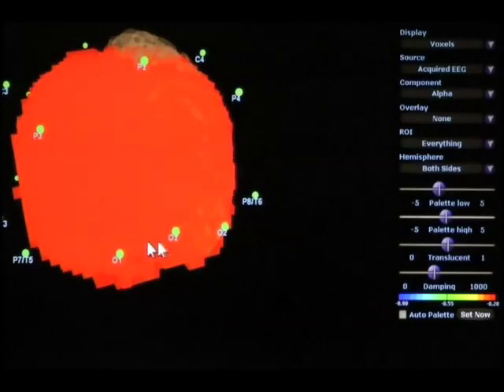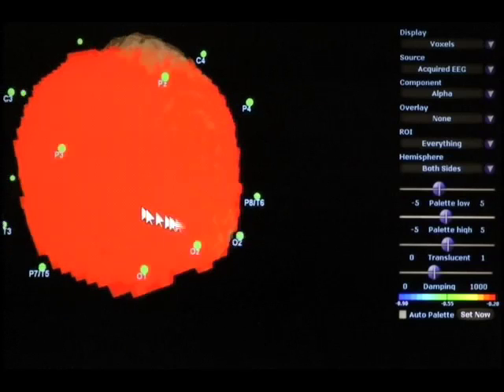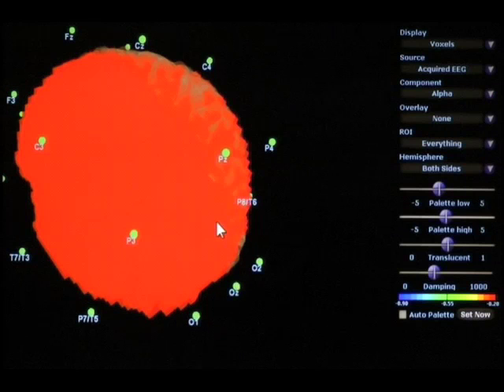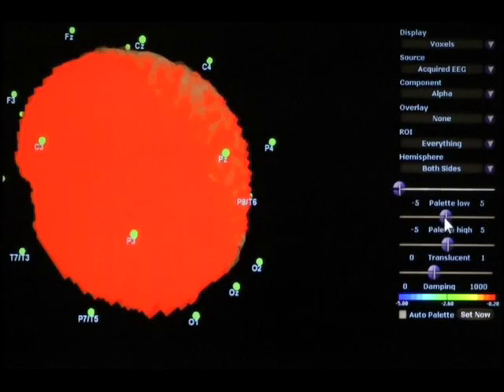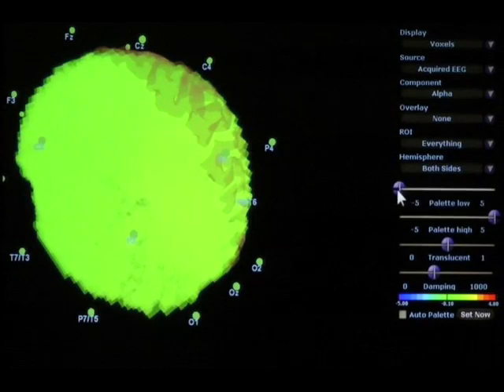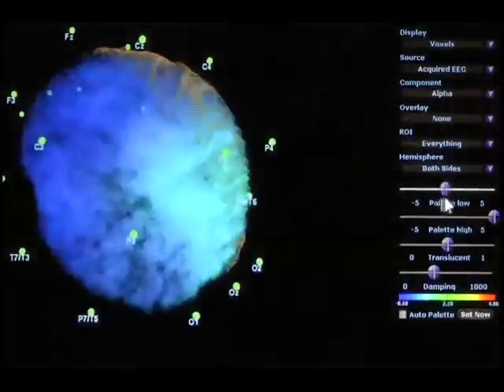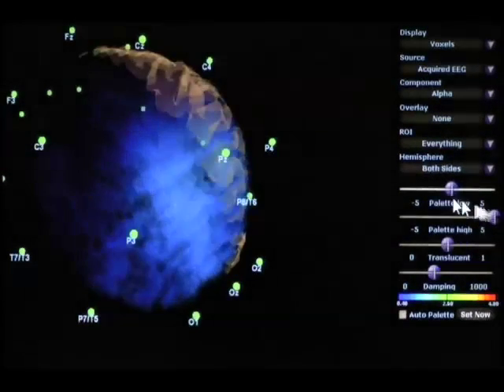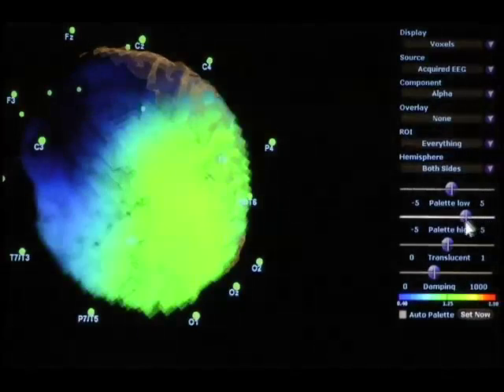When you're viewing these live LORETA screens and you're seeing something that's all red or all one color and it's not what you expect, then what you're going to want to do is first of all see if your palette is adjusted in a manner that you're happy with or whether you're using auto palette.